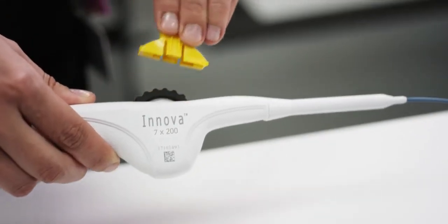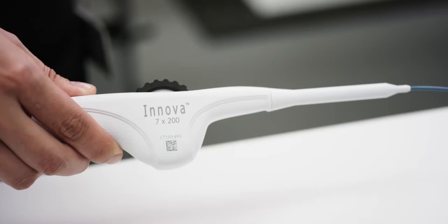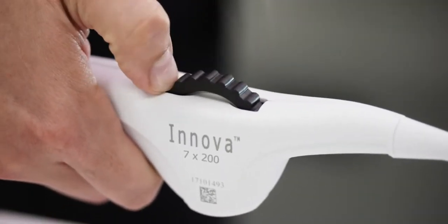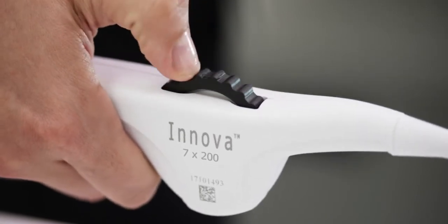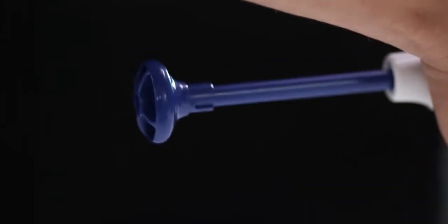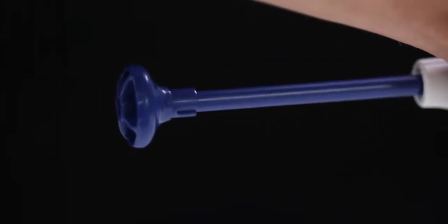For physicians, a more ideal treatment means an intuitive experience. An ergonomic system was designed by condensing the controls into a simplified ambidextrous handle, allowing most stents to be implanted one-handed. A dual deployment system that gives physicians both thumbwheel and pull grip deployment mechanisms.